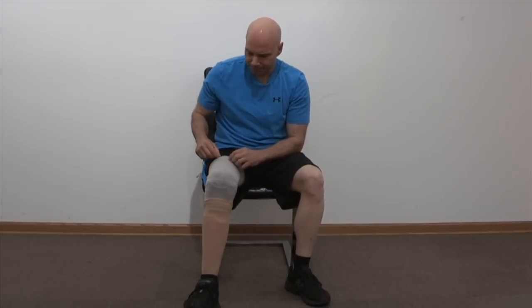The other great thing is when I take my leg off at night, it's dry. It's eliminated the moisture buildup. When I take that liner off, my leg has no moisture buildup. The only time I'll get a little is if I'm exercising vigorously — I might get some small beads of sweat. But otherwise, if I'm just going all day, I'll take the leg off at night and it'll be dry. And there are no skin breakdowns, just like with the previous elevated vacuum. Basically, all the issues I had with the pin system — pain, movement in the socket, skin breakdowns, limb shrinkage, and moisture buildup — are eliminated with the elevated vacuum system and in particular with this EMS system.